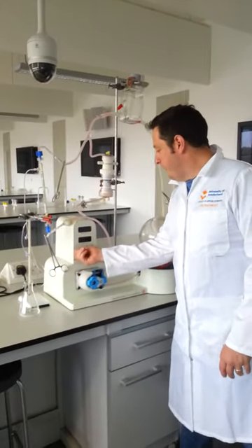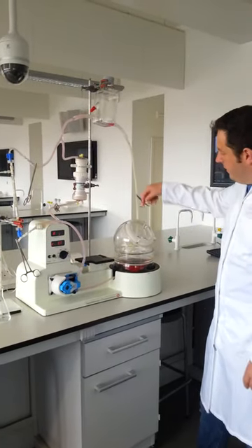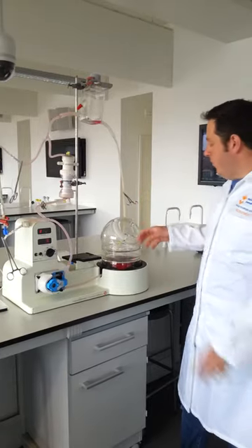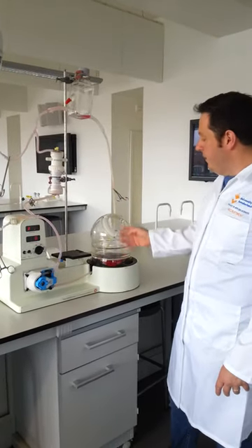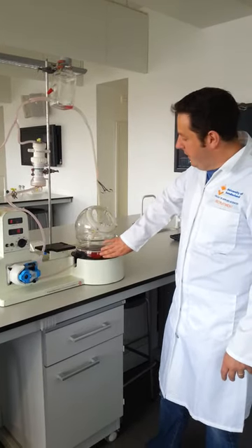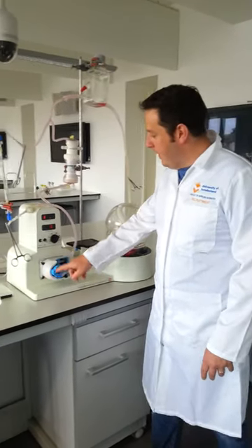We'll switch that on now. This tube will feed into the heart. When the heart starts beating, it will pump a mixture of blood and a preservation solution into the ball, and it gets pulled out.